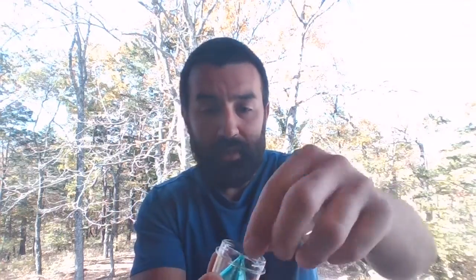That doesn't always happen for whatever reason in clinical practice, so at a minimum, I'll open this and knock off the residual and allow the thing to air dry. But ideally, you should be rinsing these with sterile water post-nebulization. So I've got that one here, the original Misty. This one, same deal. You can see my little piece here.